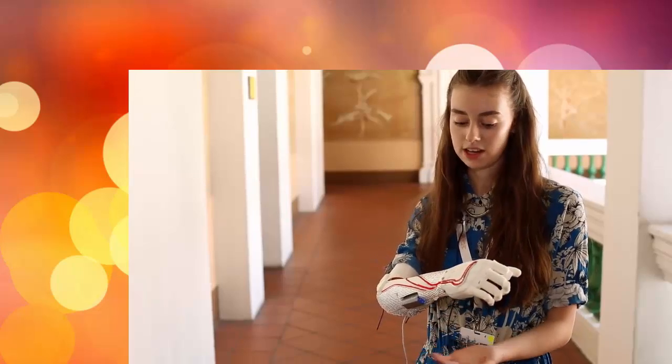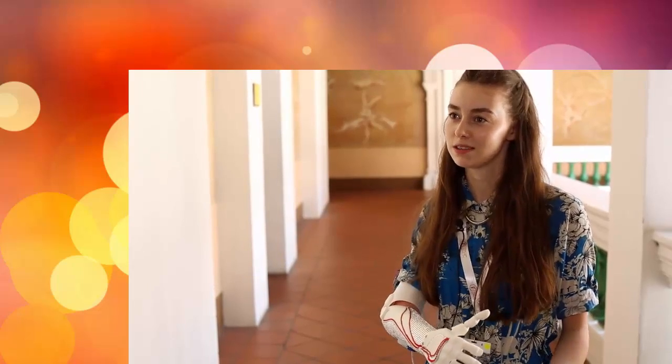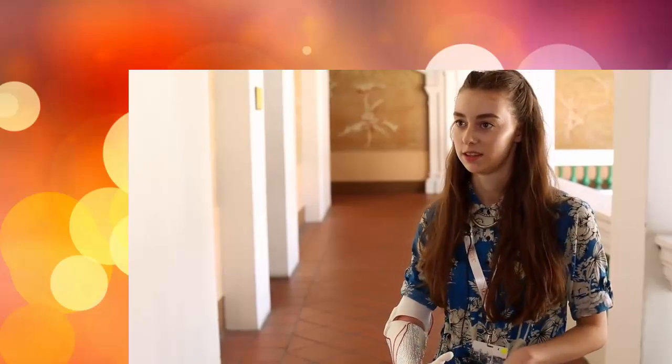This is only the second time that I've actually put it on. Last time I put it on, I literally put it on two minutes before showing everyone else. And yeah, it's so, so easy. It's literally just muscles on my shoulder — muscles we use every day.